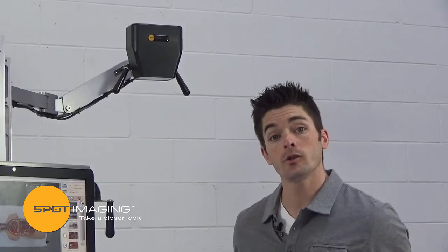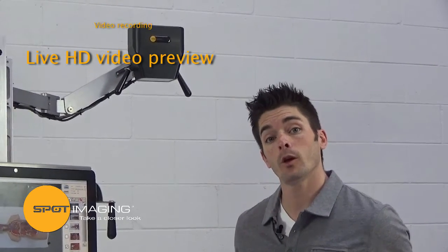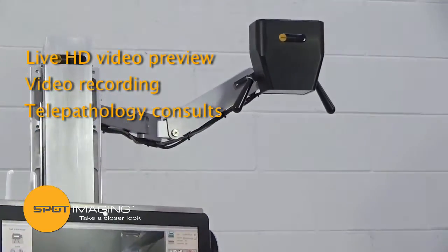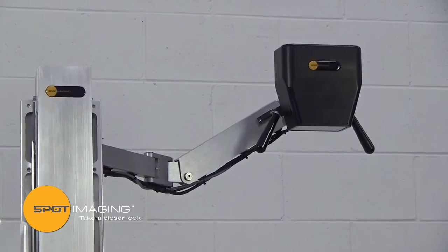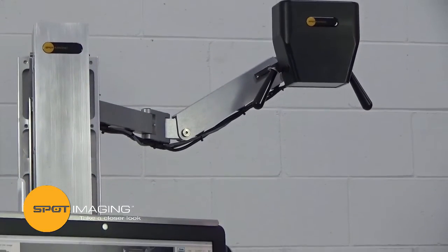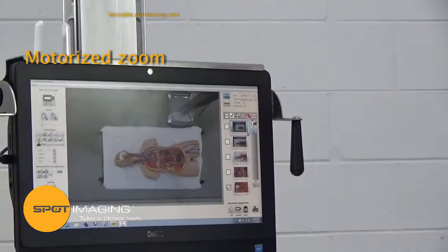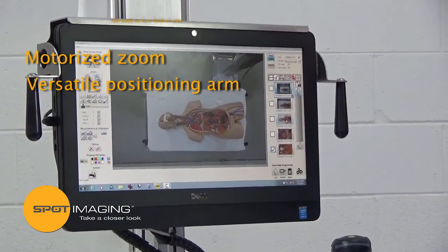Our G20 camera provides live HD video preview, video recording, and telepathology consults. The 20 megapixel captured image ensures that your images meet legal submission standards as well as provide the resolution needed for image cropping. The motorized zoom and versatile positioning arm easily provide you with the full body to one centimeter field of view.